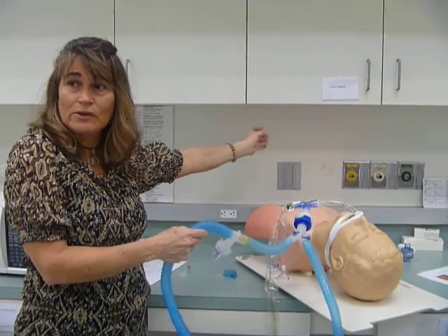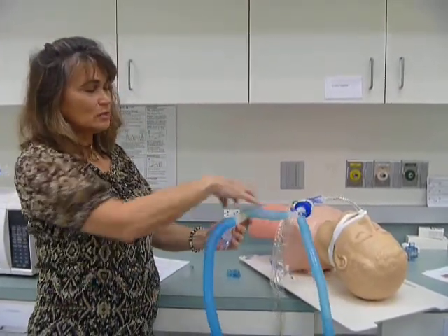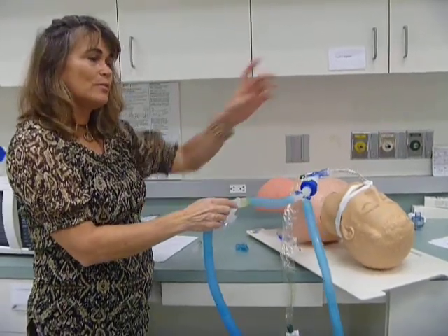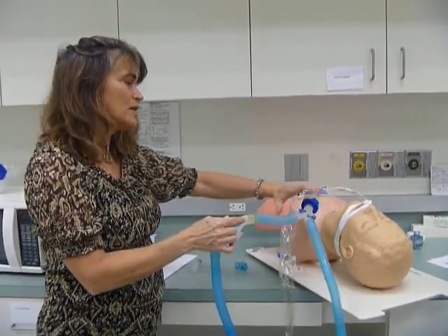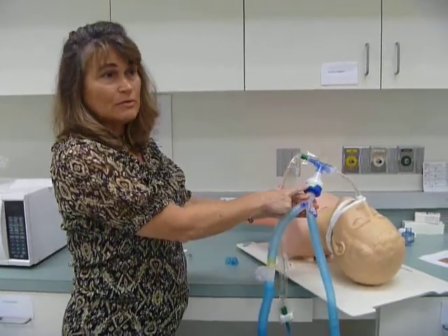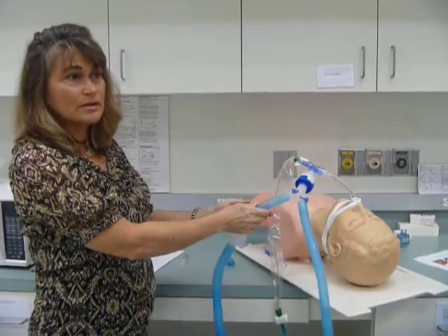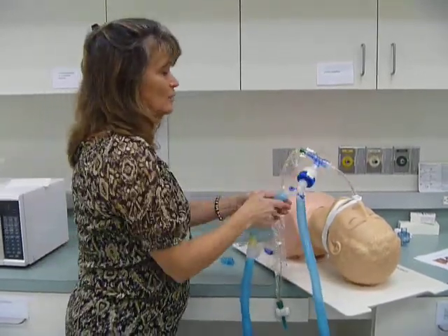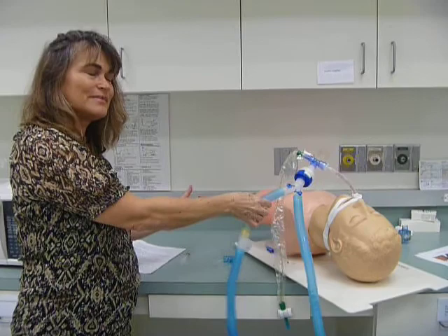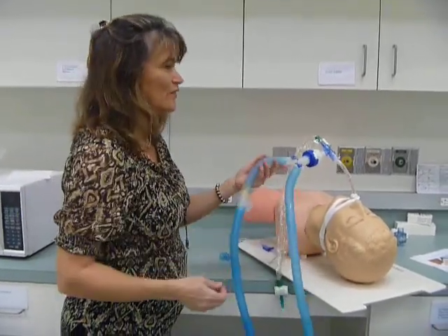You know how you turn your flow meter, 7 liters, 8 liters a minute. So the medication will nebulize, it'll fill the tubing, and then when inspiration begins, all of this medication will get delivered to the patient. It's not going to get through the heat and moisture exchanger, though, unless I switch it over to where it says aerosol. If this didn't allow me to switch it, I'd have to take the HME out during the treatment and then put it back in. Not that it's very clean to do that.